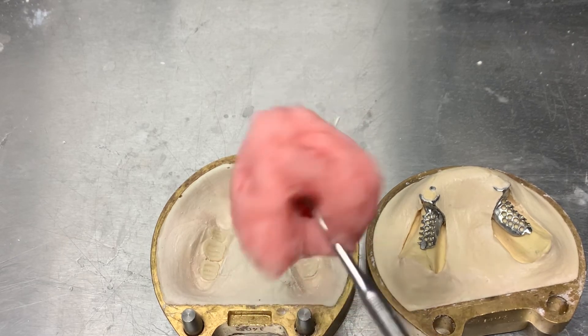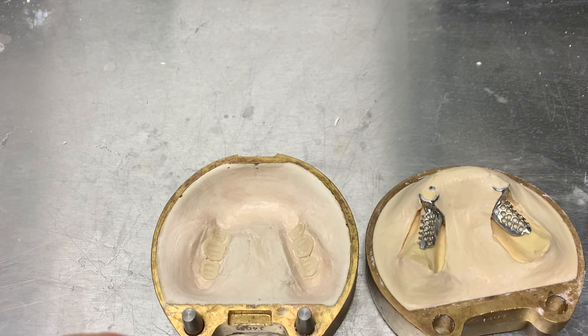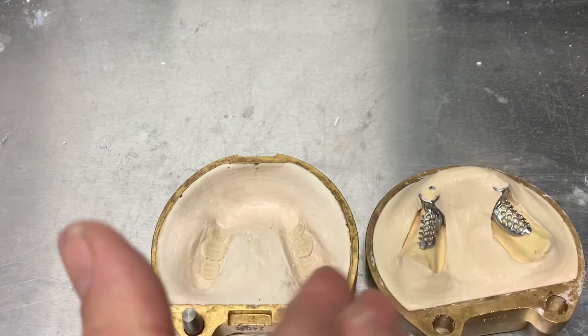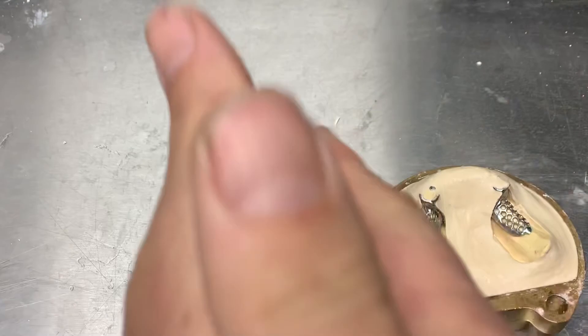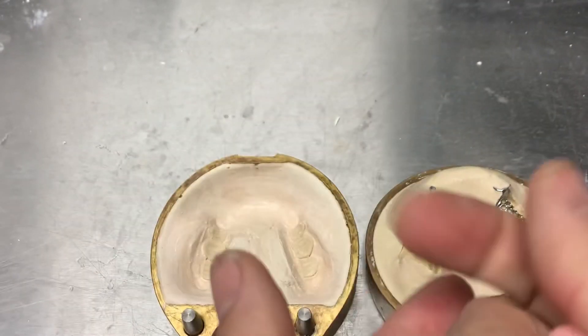I've taken it out of the glass vessel. Theoretically you should use a plastic spatula, because the fibers inside the acrylic may be magnetized or develop static electricity with a metal spatula, and then you'll get clumps of fibers joined together in your acrylic.